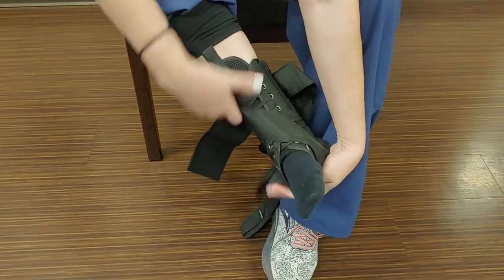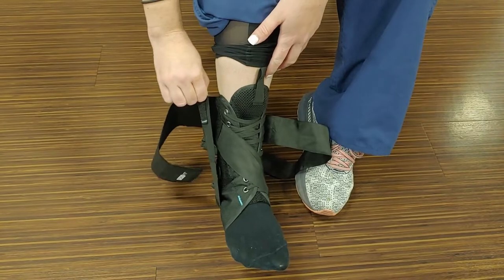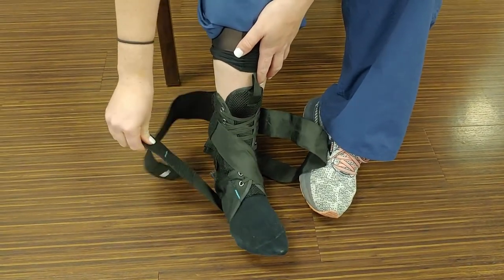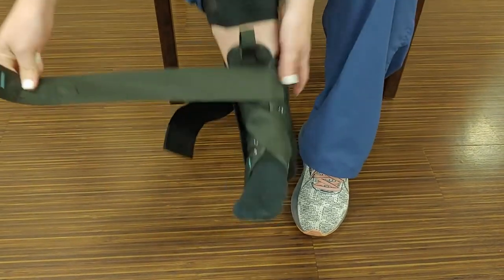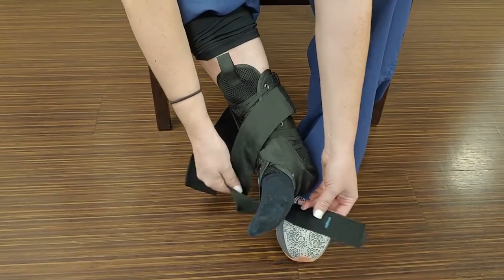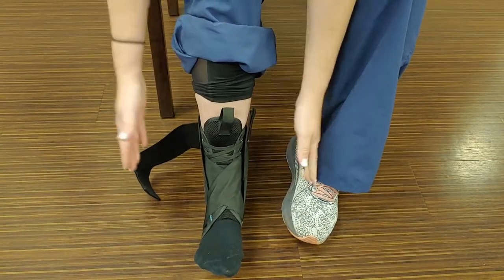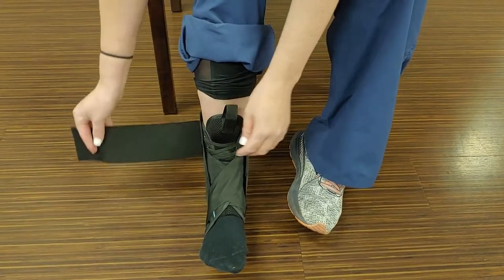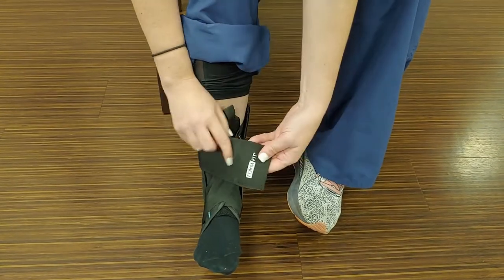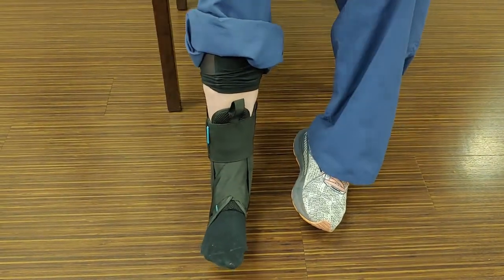You're going to come right underneath the arch like that, then pull up and hold. It starts here — you're pulling over and hold. Then you do the same thing with the other one, swinging down and around, and you can secure it or pull in that direction to lock it in. That keeps your ankle in a good position so that no ligaments are getting irritated while you're healing. The last strap is your form fit — just take it to your comfort, go all the way around, and secure it.